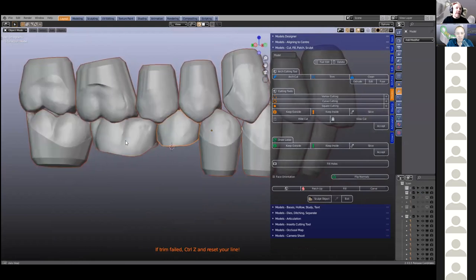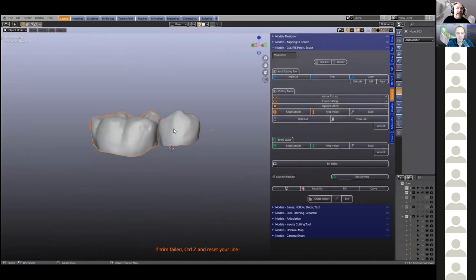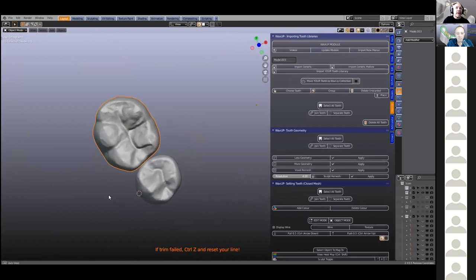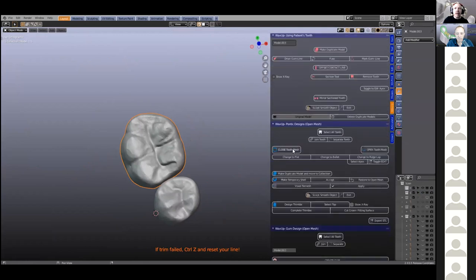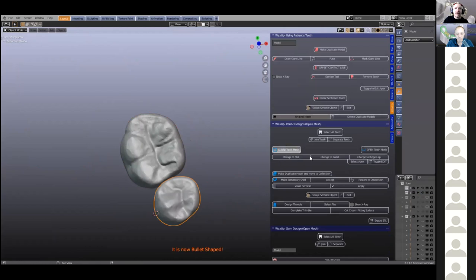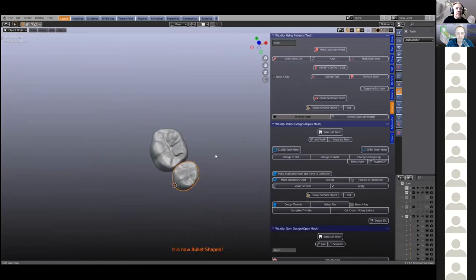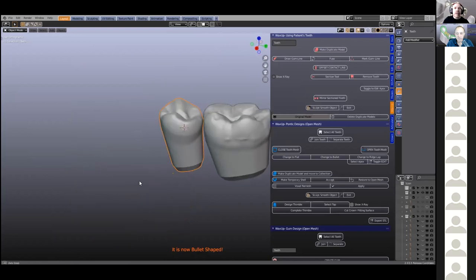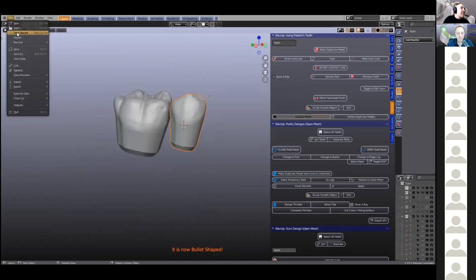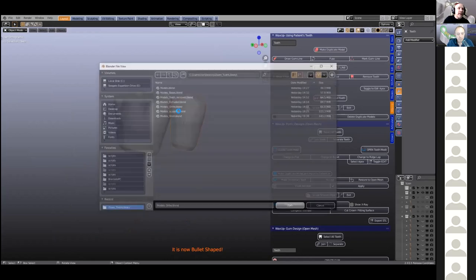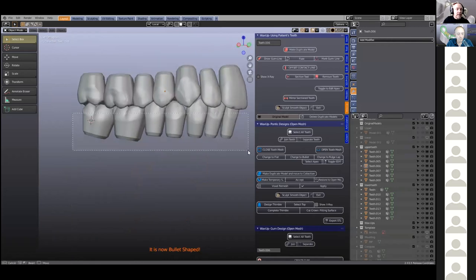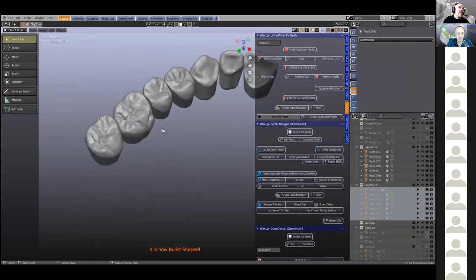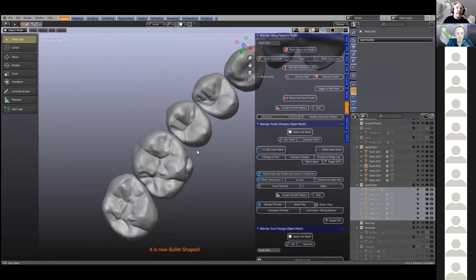Eventually we're going to end up with entire new quadrants, upper and lower. And once we've got all of these done, we're going to go back into the wax up module and extrude them nicely into our roots. Into the blue menu here — we're going to close the mesh first and then change to bullet shape. Then we end up with beautiful teeth all the way around like that. I'm just going to open the next file. Here are the teeth that have been sculpted. You can see I've actually gotten the crease tool to work quite nicely like that.